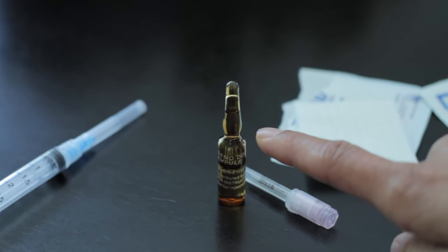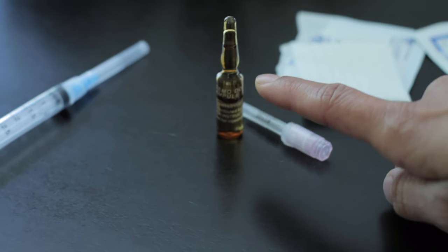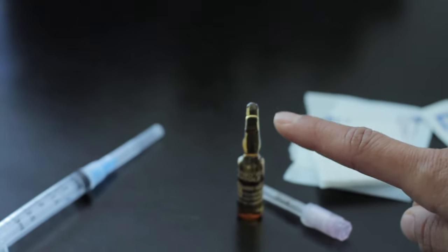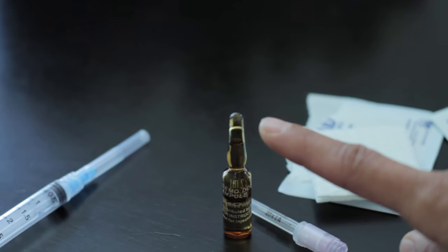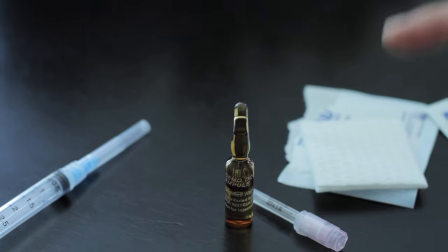So here is your ampule. You have your tip, then you have the neck of the ampule, and then you have the body of the medication. And you'll notice on the tip there's some volume of medication there that can be forgotten, so you want to make sure you flick, and I'll just show you how to do that.